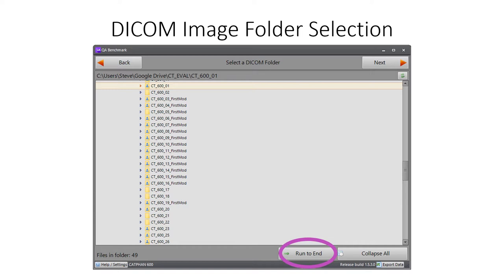At this DICOM folder selection screen, the user navigates through their system drive, network drive, cloud storage, or archived media for the location of the user's CatPhan data. If the selected DICOM folder contains a single CatPhan series, the user can click the run-to-end button. This action will bypass the phantom study and series selection screens. If the DICOM folder contains multiple scan series, the user clicks next to view the DICOM directory of the phantom studies in the selected folder. Additional information displayed on this screen includes the folder pathway, phantom selection, and number of files in the selected folder.